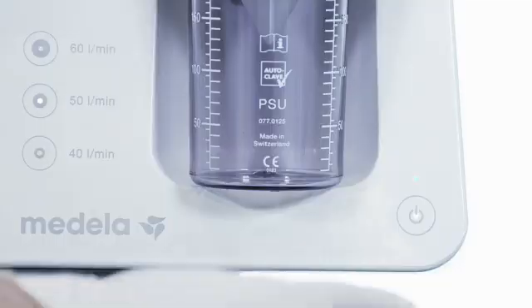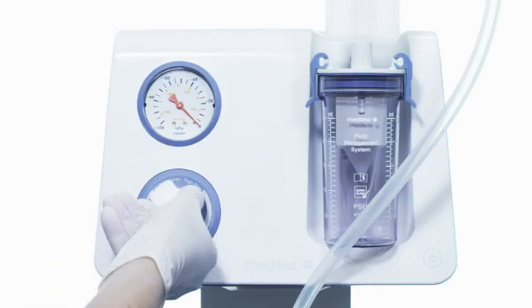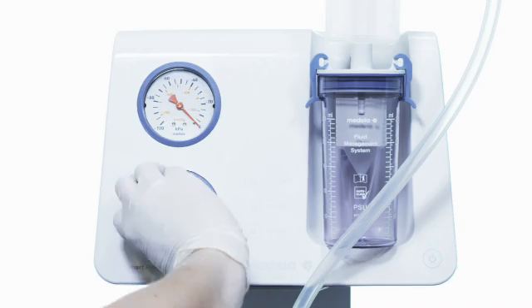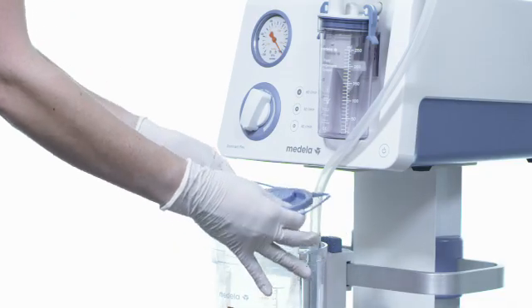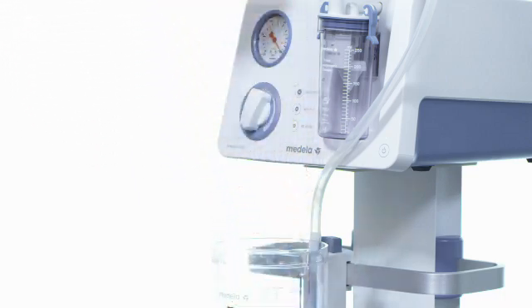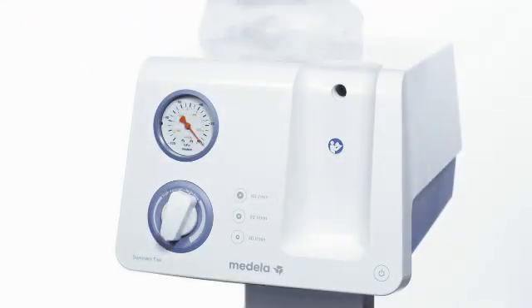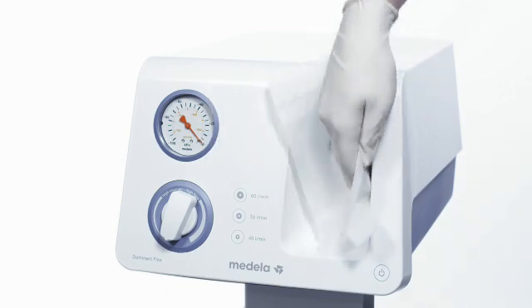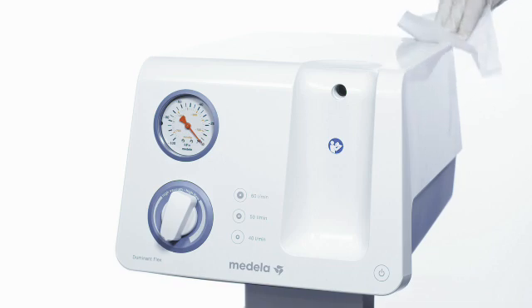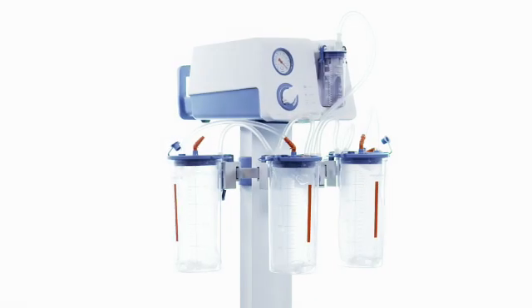Turn off the pump and reduce the vacuum to zero. Remove the liner from the jar and dispose of according to local guidelines. Clean the pump and the necessary accessories, and if necessary prepare for the next operation.